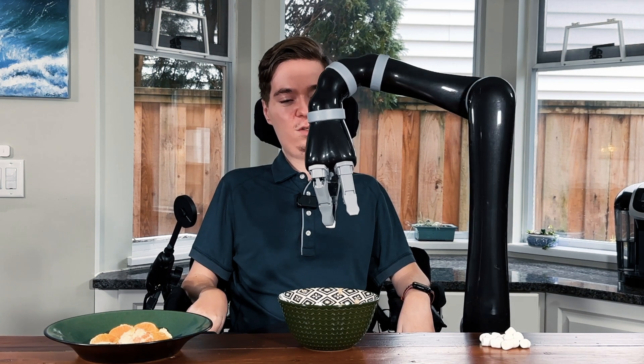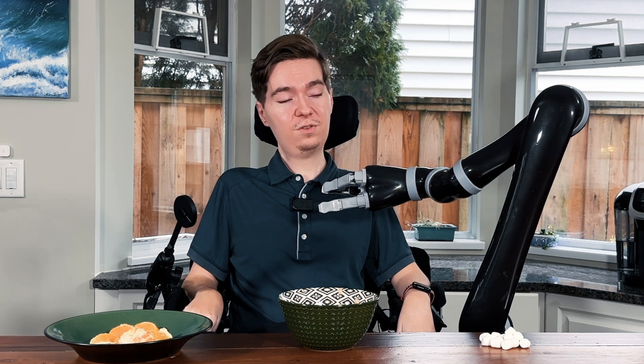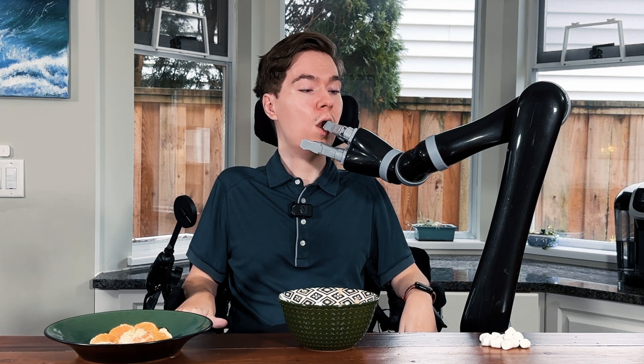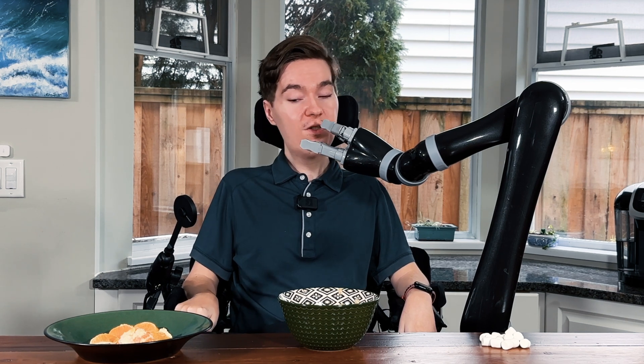So now we're just going to bring it over, going to orient and point the fingers towards our mouth, and what I'm going to do is bring my mouth up to it. When my mouth has positioned itself where I'm going to be able to catch the marshmallow as I release, I'm going to start slowly releasing. There we go. Great success.